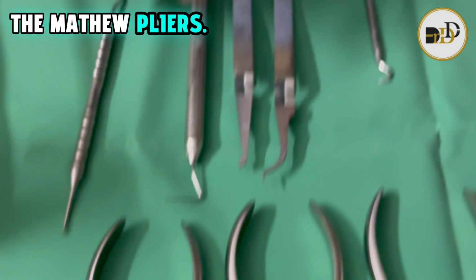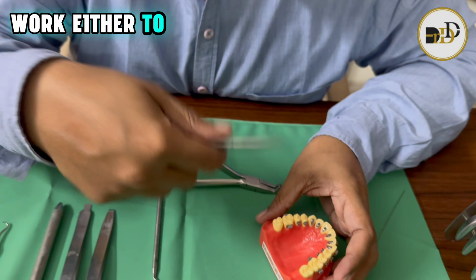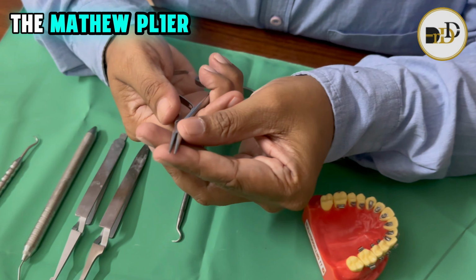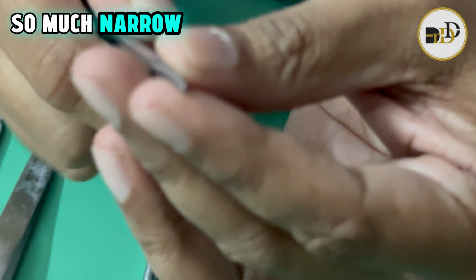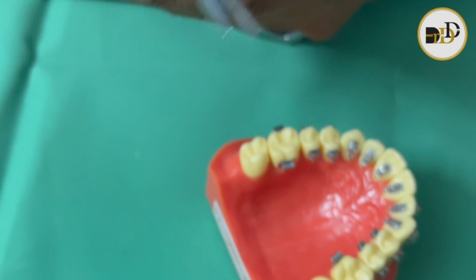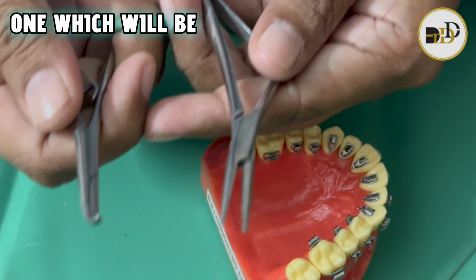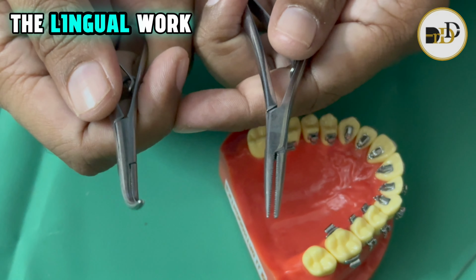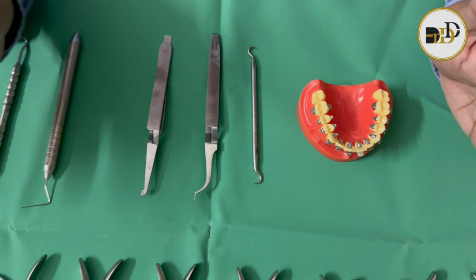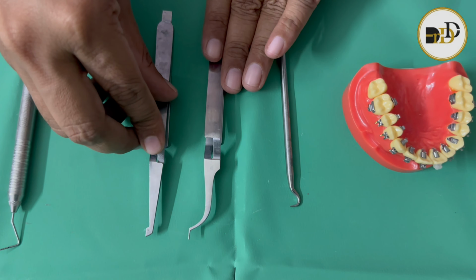Next, coming to the Mathieu pliers. For making the ligation or engaging the elastics, the Mathieu plier tip should be very narrow, so that it will be very easy to perform in the lingual setting. There is a straight one and a curved one, which will make the lingual work so much easier.